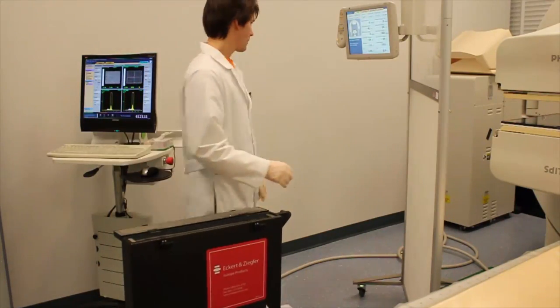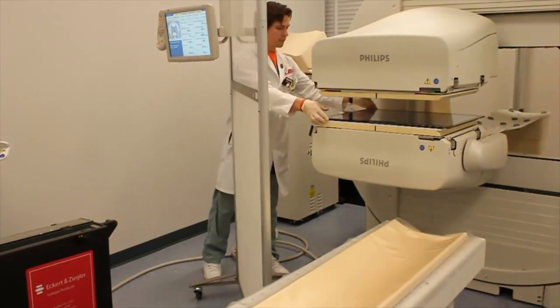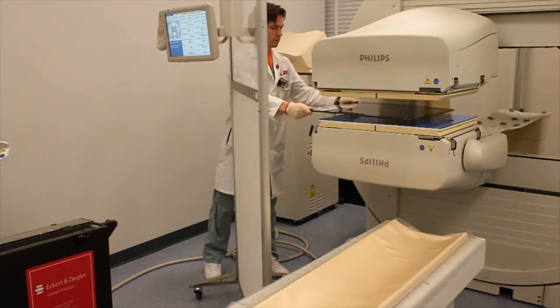After the acquisition is complete, move the detectors apart and remove the source first.